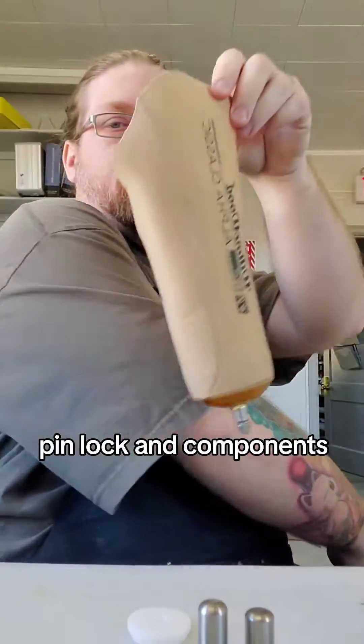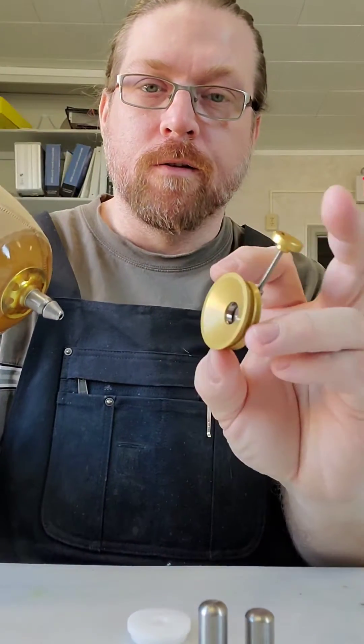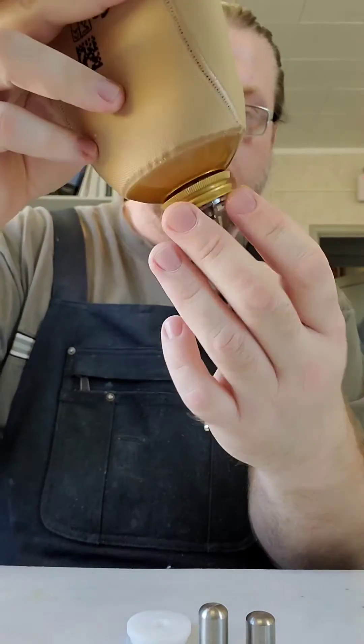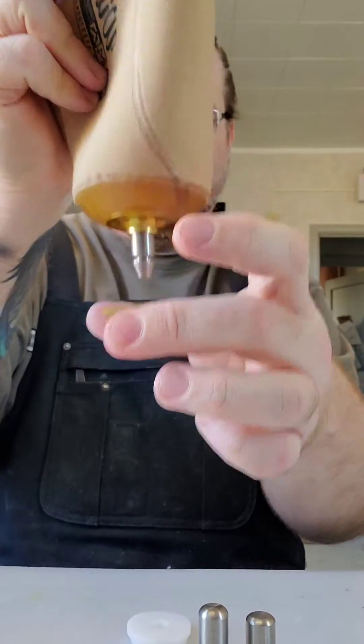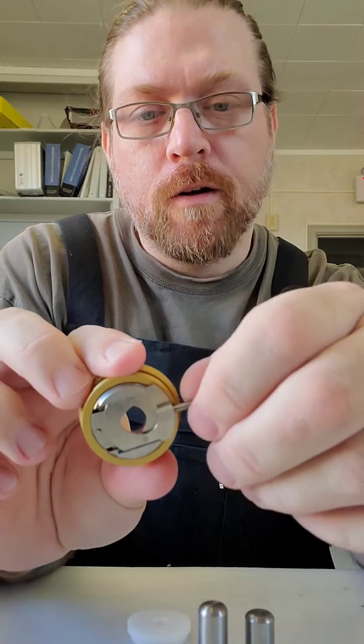This little gel liner will go on the arc, come down, and lock into this little lock that I laminate in. It's a cool little lock — just a single pin lock.